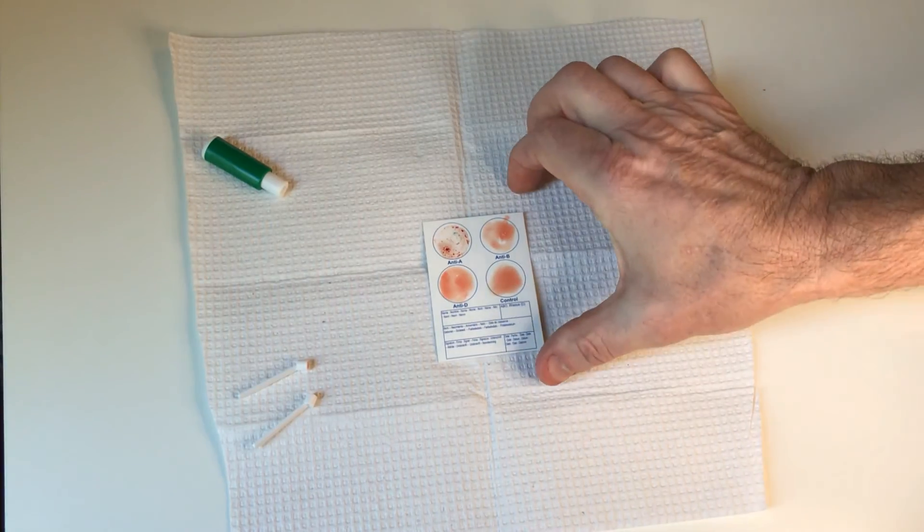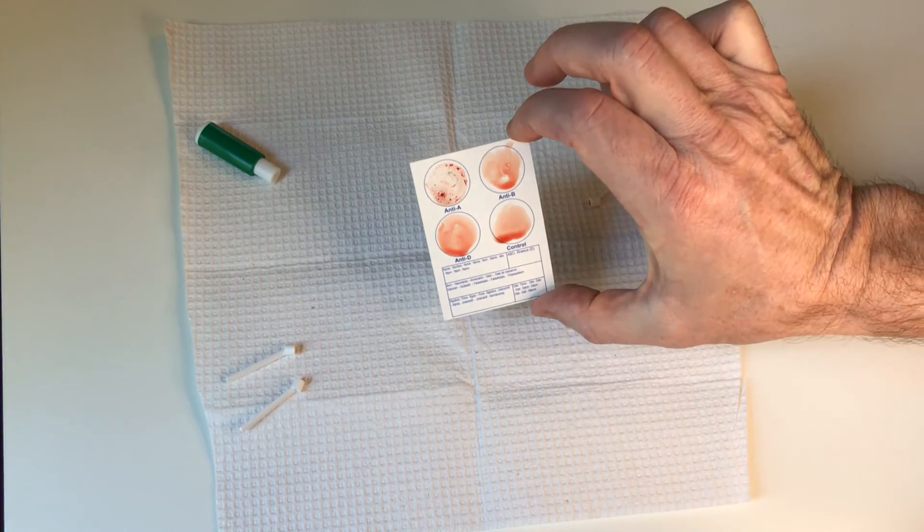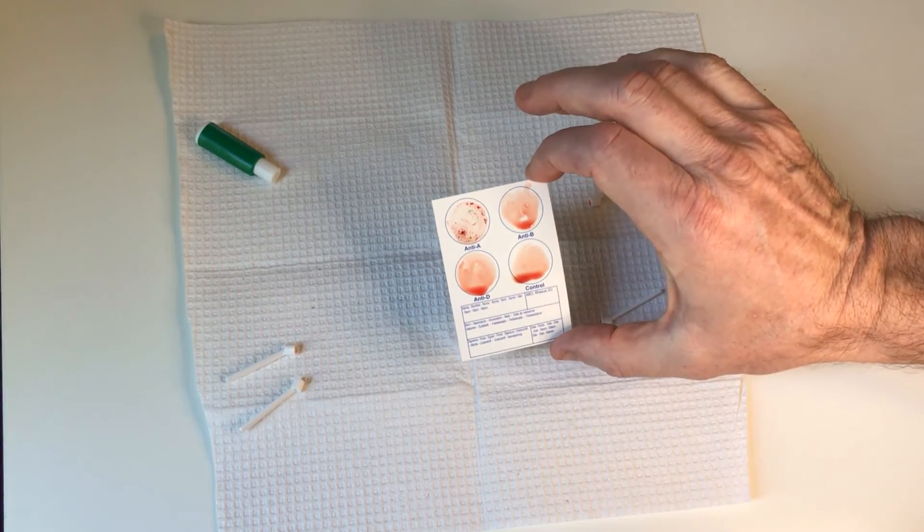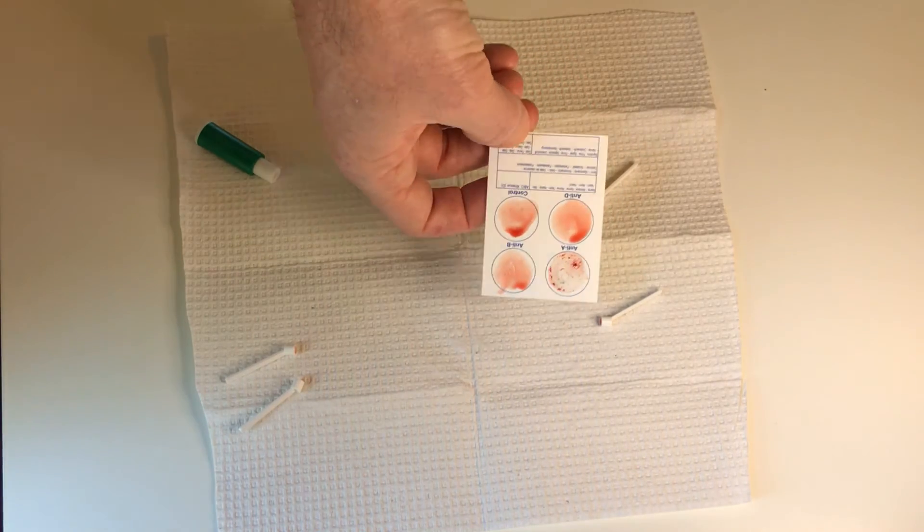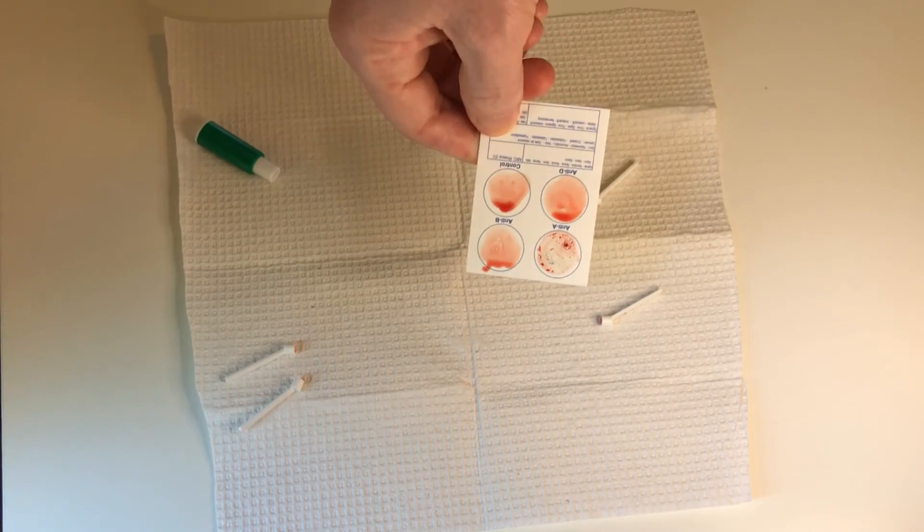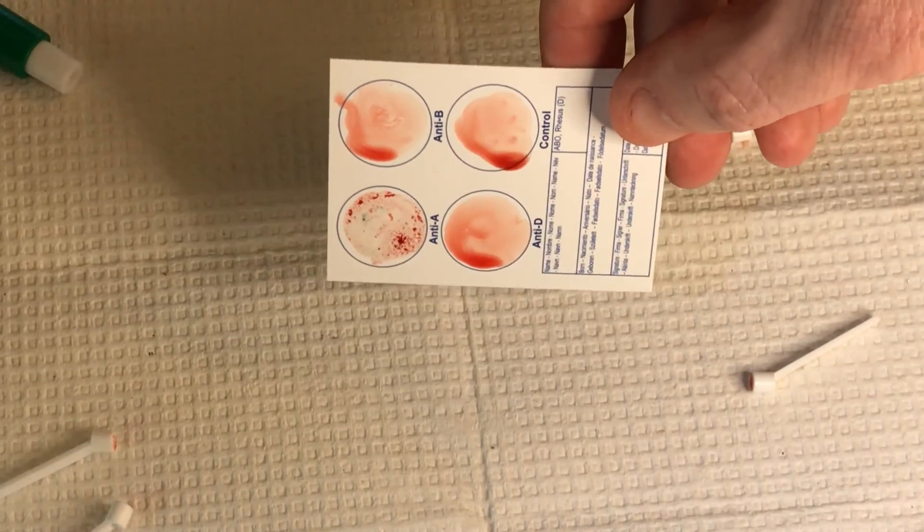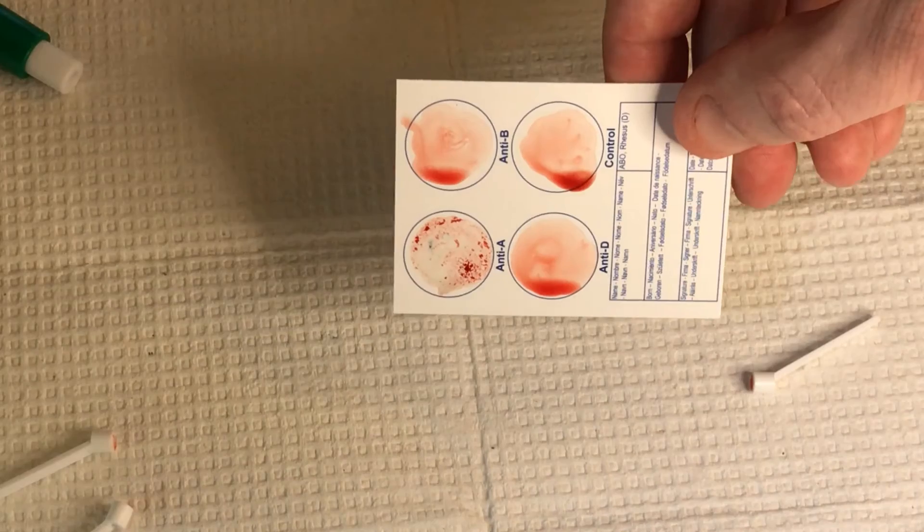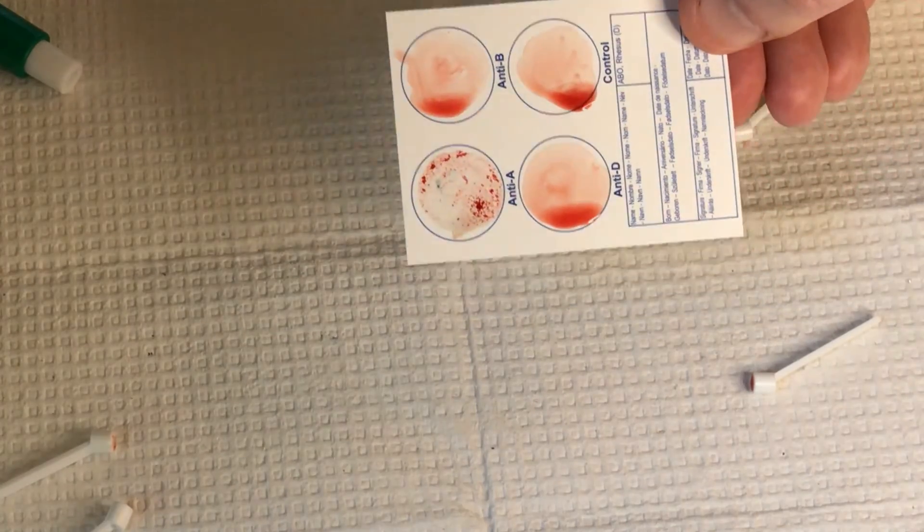I'll take this over. So what I'm going to do now is I'm going to tip it for ten seconds this way. You guys can already see the difference. And I'm going to tip it for ten seconds this way. I'm being kind of sparse with my ten seconds, but there we go. We're zooming in. Looking good. Tip it ten seconds this way. But you can clearly see the difference between this video and the last video.